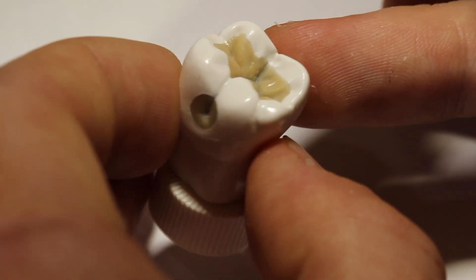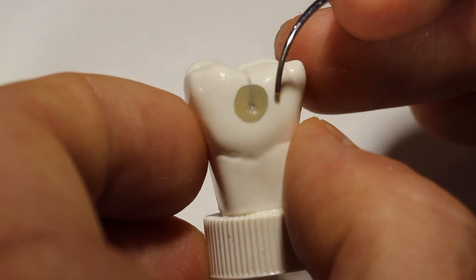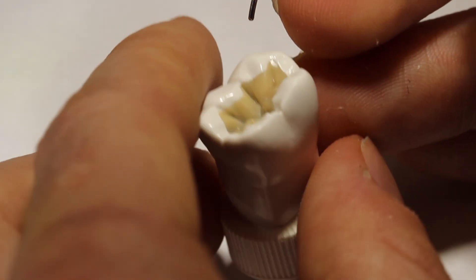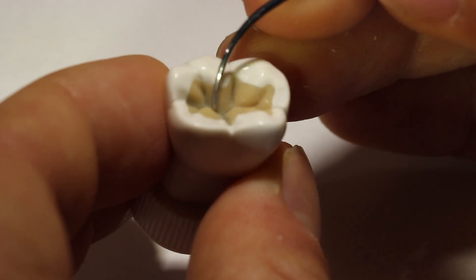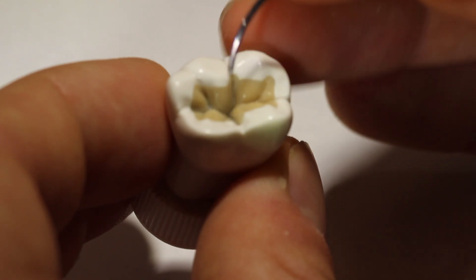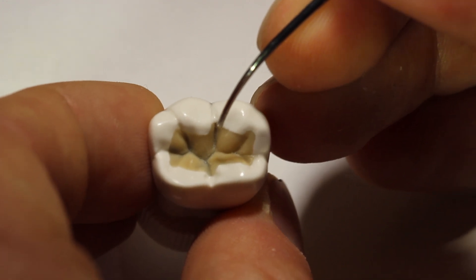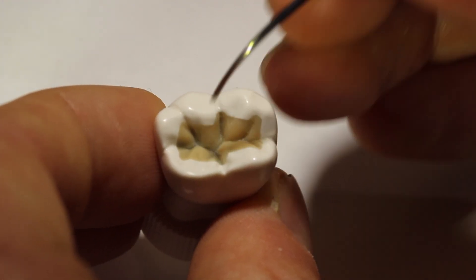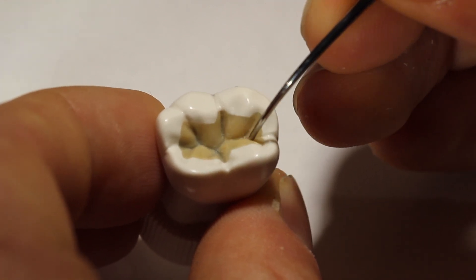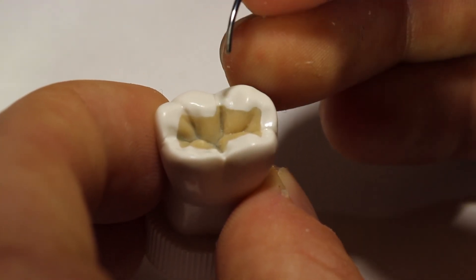On your model tooth that you're going to have to replicate, you can use that and feel how deep that depression goes. Then go to your own tooth and feel that depression — if it's more or less, you'll need to know if you have to add or subtract wax. You can also use it to figure out the different angles in your central groove. If you're not sure if the angle is correct, take your model tooth, figure out what that feels like, then go to your real tooth and compare them. You can also do this to see if your central pits or any pit are in the correct location.